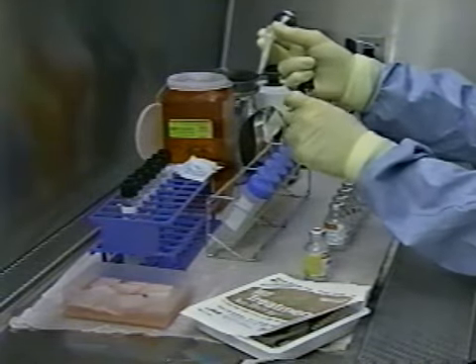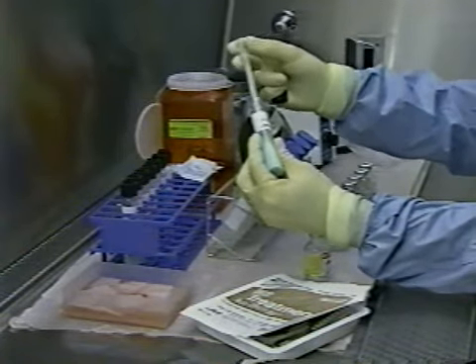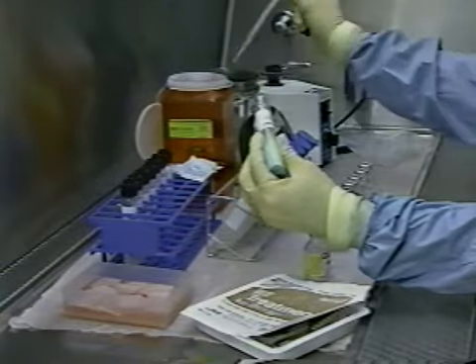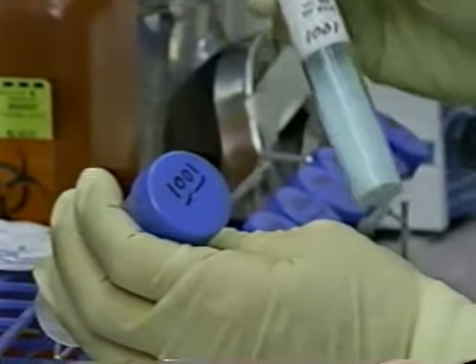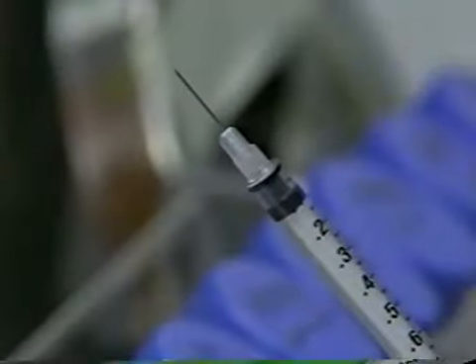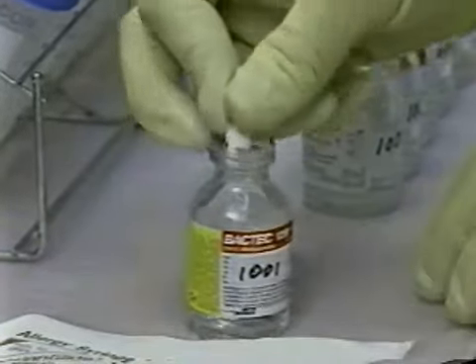Observe that both liquid and solid media are being inoculated correctly, in this case, Bactec 12B and Lowenstein-Jensen. Use of both solid and liquid media increases the sensitivity of the isolation process. Notice the precautions that the worker is taking. Checking the labels on the specimen concentrate and culture media that is to be inoculated to make certain they are identical. Opening only one specimen tube at a time. Making certain that the needle is permanently attached to the syringe. Swabbing the septum with disinfectant after the bottle has been inoculated.